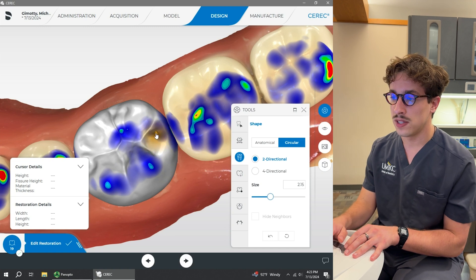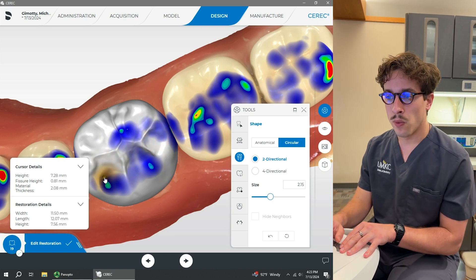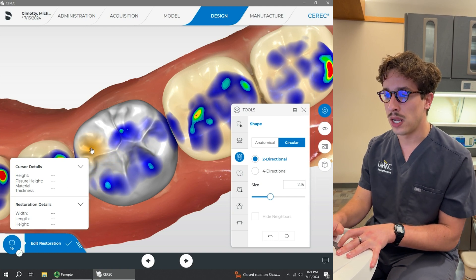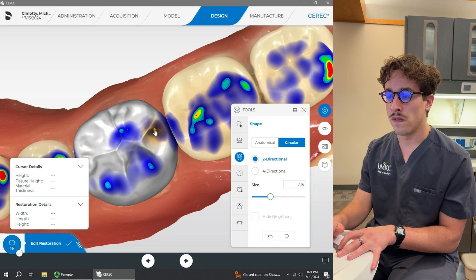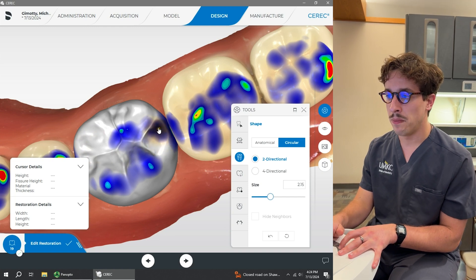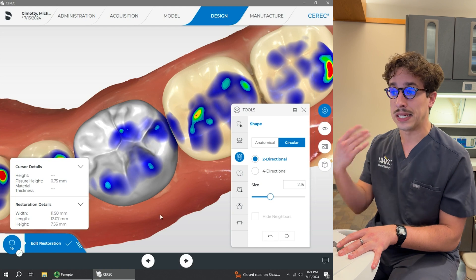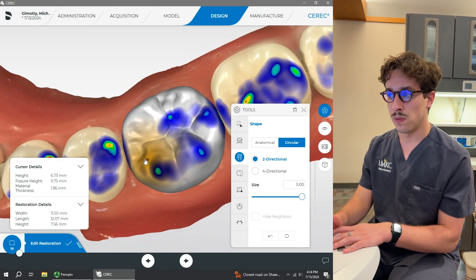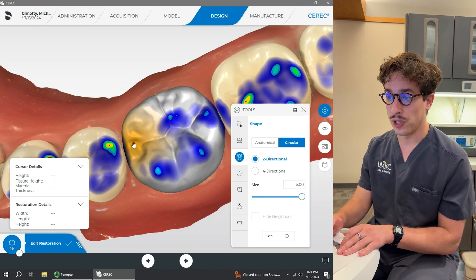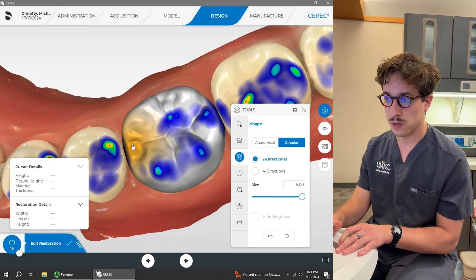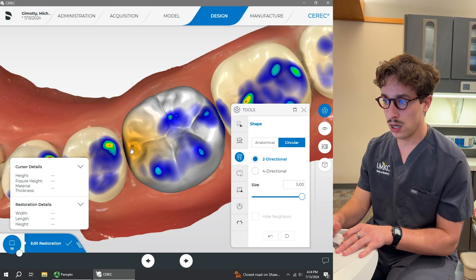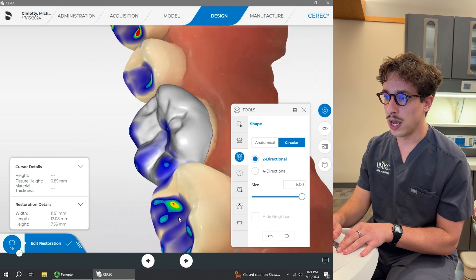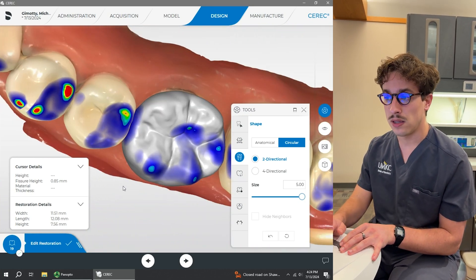Hide the upper jaw again, come back to the occlusal view — I'm actually going to raise these up a tiny bit more. Using the shape tool, you're able to maintain your anatomy so that I can get this to really be similar to the adjacent teeth. This looks really quite solid — we have well-defined cusps and a lot of anatomy. And this is where you're able to fine-tune as much or as little as you'd like. If you want to just generate something and hit go, you can do that — but going through and actually caring about your design will save you a significant amount of adjustment chair-side, because you've already dialed in your occlusion.